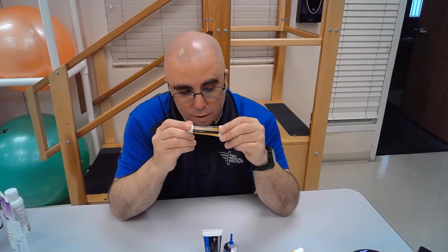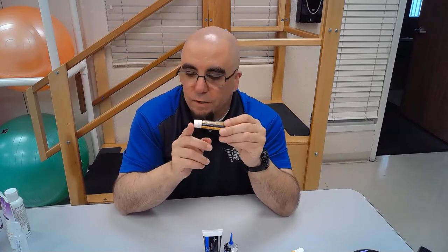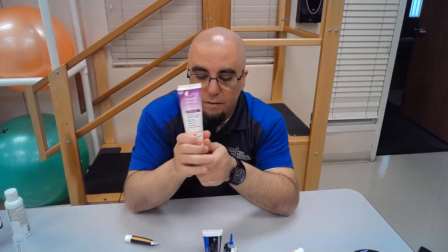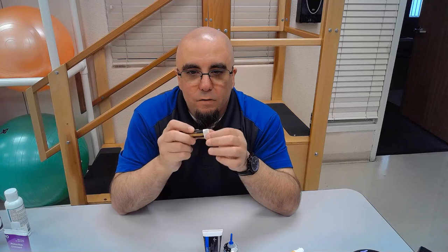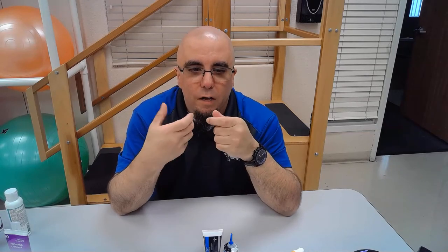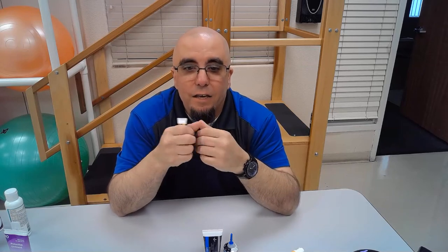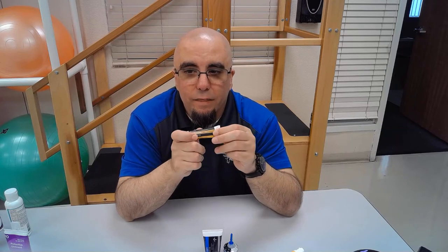We also have Thera Honey, which allows for debridement of wounds. There's also a barrier protectant used on the outside of the wound bed. Autolytic debridement means using the body's own natural chemicals to debride the wound — to do that we keep the wound moist. If we don't keep the wound moist, it won't autolytically debride because as the wound dries out it sucks everything back down.